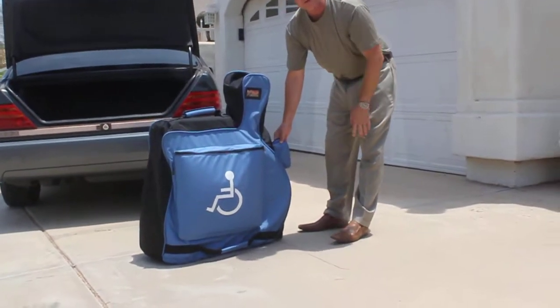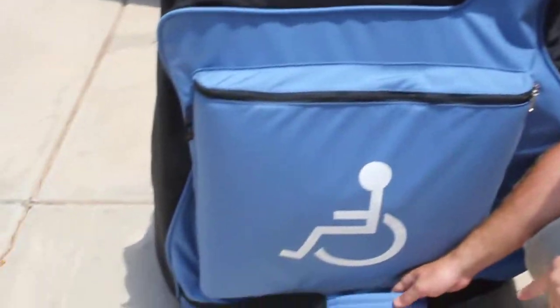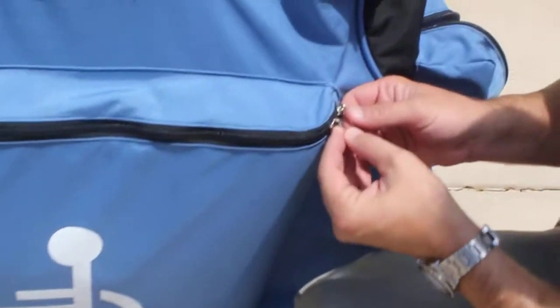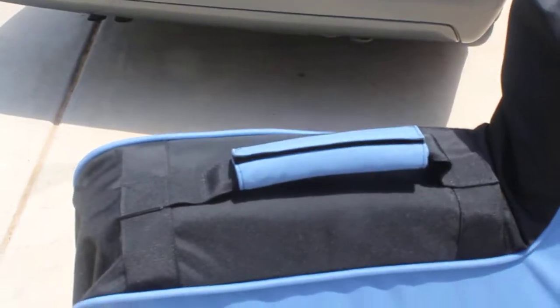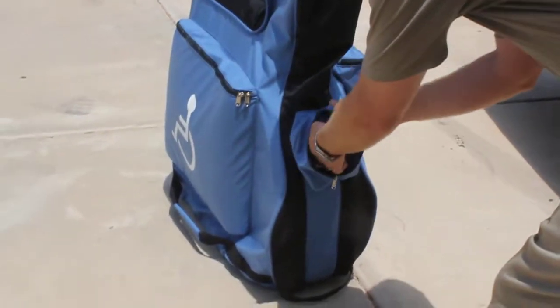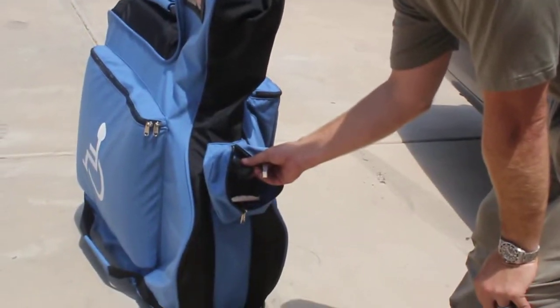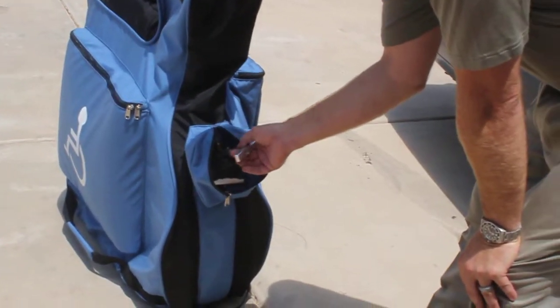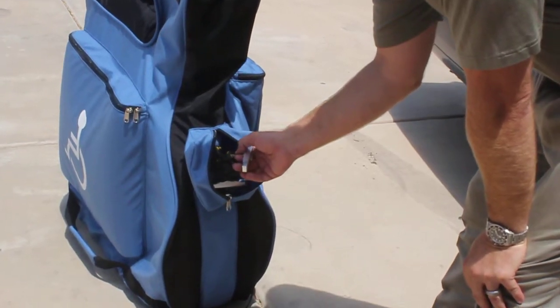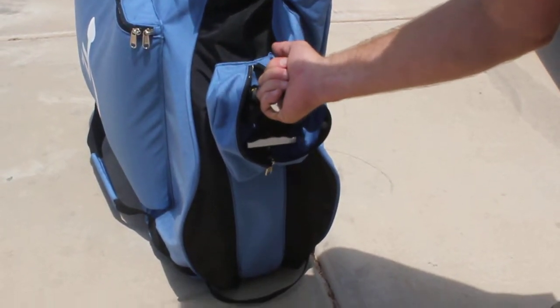Now you can come over and I can show you some of the features. We've got hugely reinforced handles, reinforced handles down here, stainless steel zippers, and a padded handle up here. You've got your travel tag back here. These are spinlock rope clutches — stainless steel rope clutches used to keep sailboats in place on the open seas. Rock climbing rope at 1,000 pounds test strength, with billet handles that have also been designed to go right into your hand.